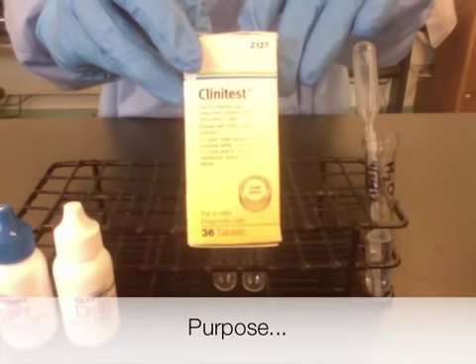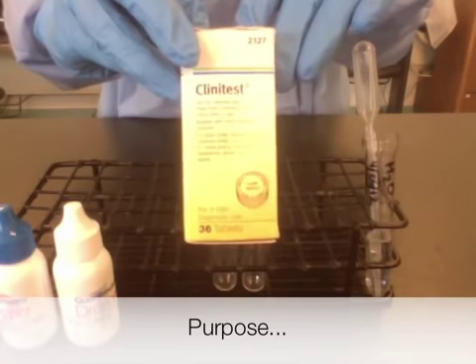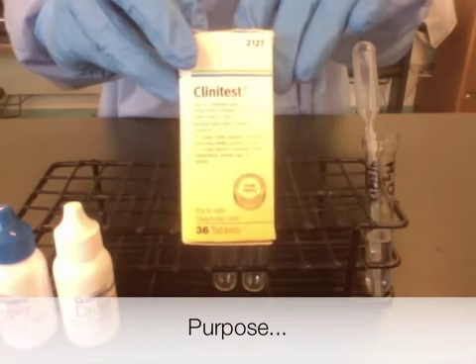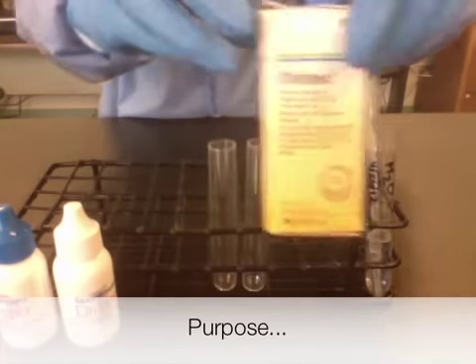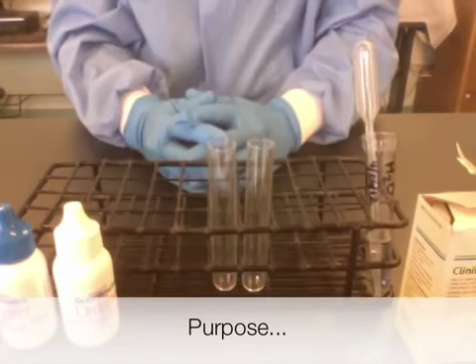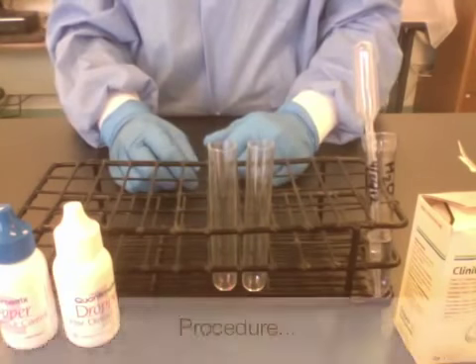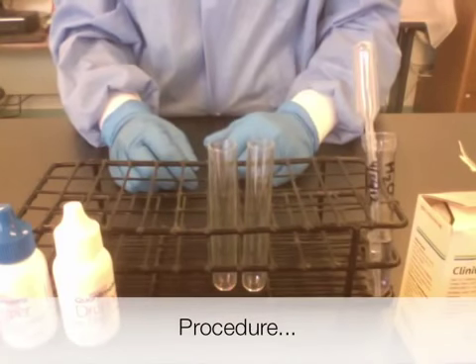The Clinitest is a confirmatory test used for the detection of reducing substances in the urine. It is performed on pediatric patients, typically less than two years of age. I'm going to demonstrate the confirmatory test using quality control.